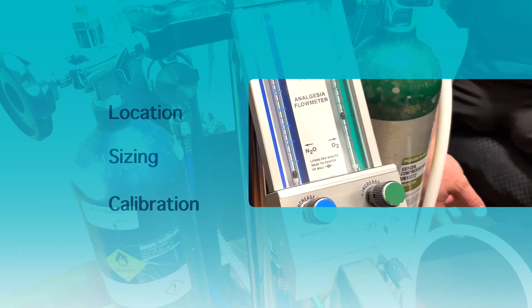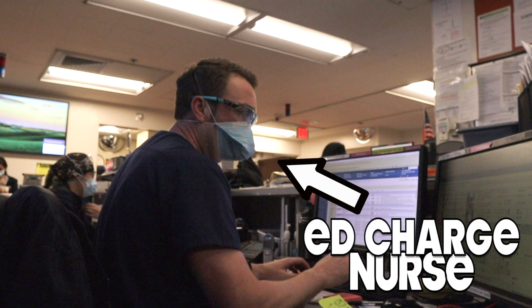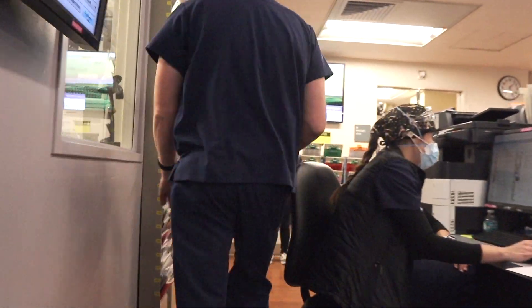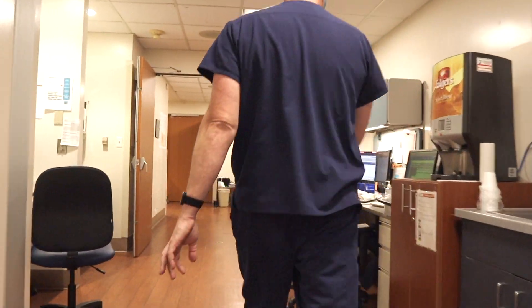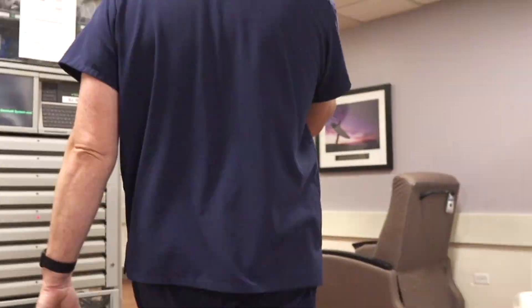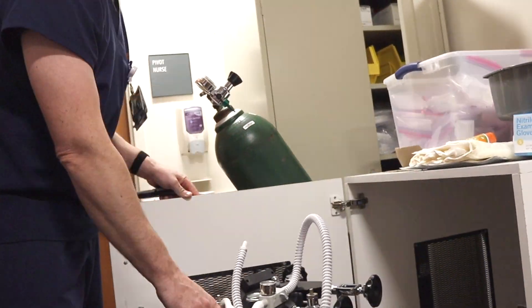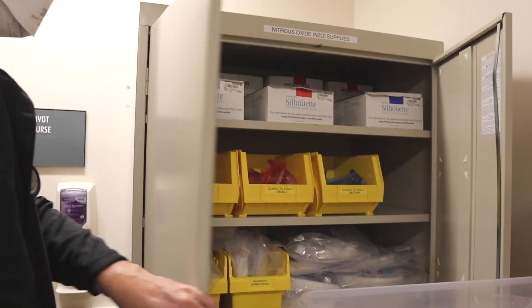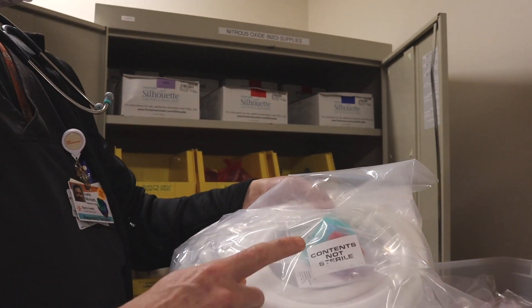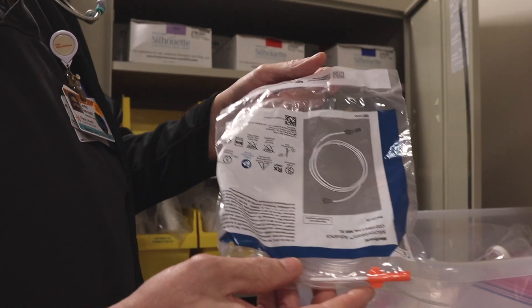RTs, you're in charge of the initial equipment setup. First, talk to the ED charge nurse to have the nitrous tank unlocked. The nitrous storage is kept by room 28, directly behind the ED lobby check-in desk. The tank and flow meter are kept in the storage cabinet, while the disposable circuit and nasal masks are in the adjacent unlocked cabinet. Gather your disposable circuit, an end-tidal CO2 monitoring line, and the appropriately sized nasal masks.